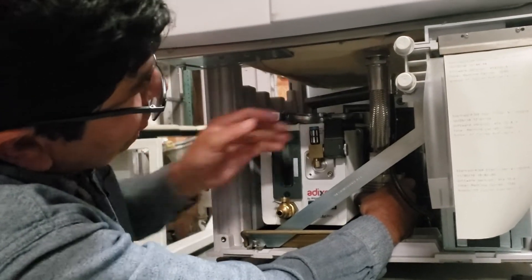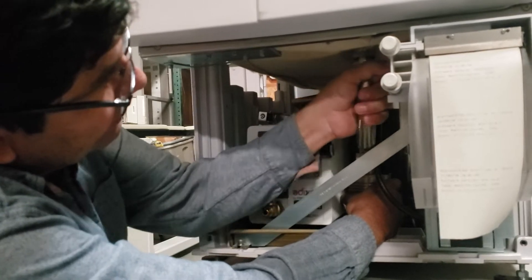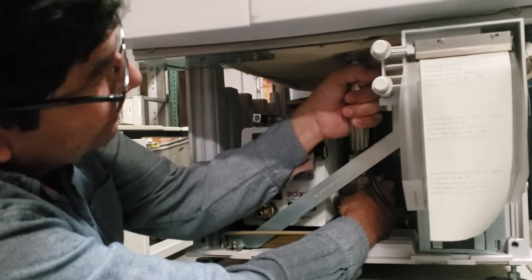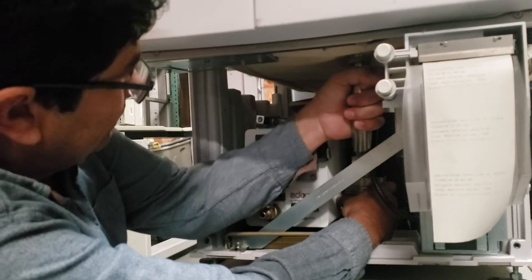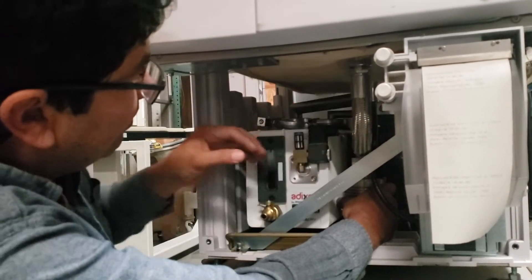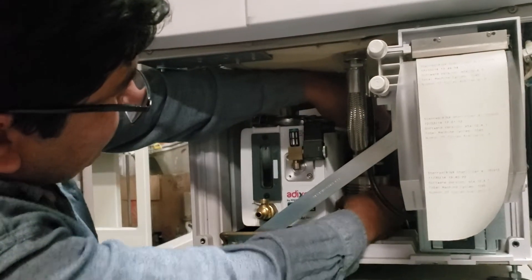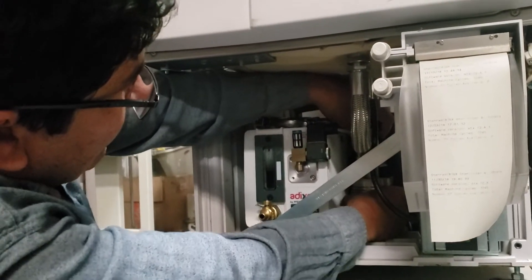Also need to be sure here this hose is attached. Those are the most common places where you can get a leak.